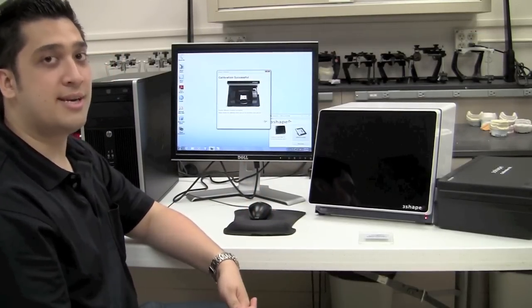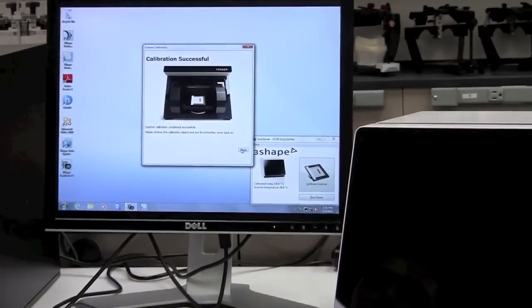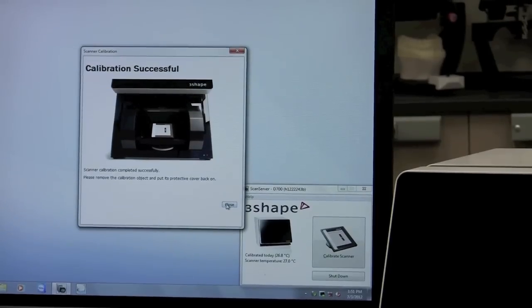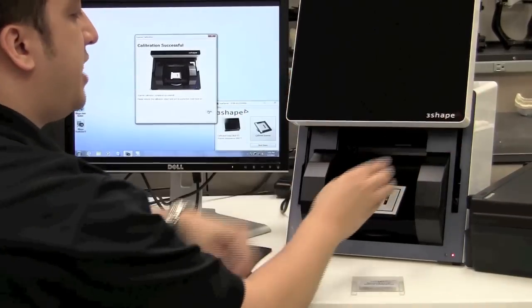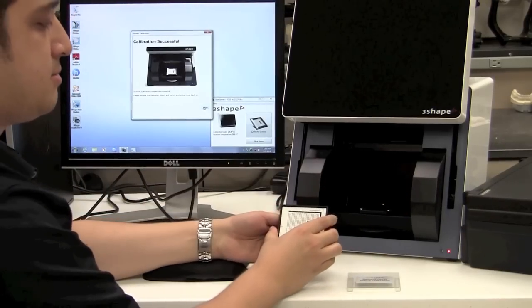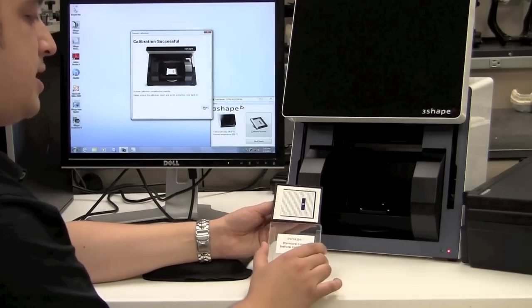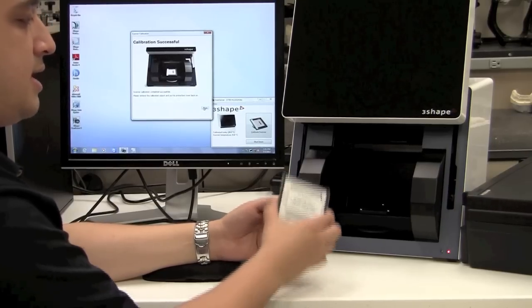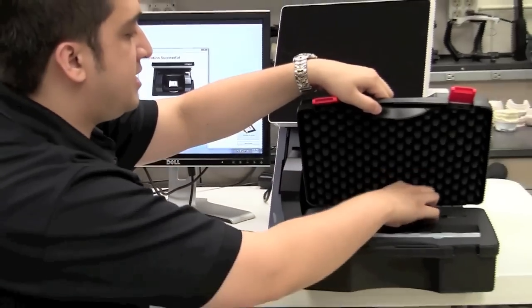After calibration is complete, you're going to get a notification window on the screen telling you that the calibration has been completed successfully. It also states to go ahead and remove the calibration object and put its protective cover back on. We'll open the door, grasp the calibration item on both sides, and pull it straight up. Then grab the plastic cover, place it over the bottom of the calibration item, and slide it straight up to protect the calibration surface. Now we can place this back into the calibration kit and set it aside for future use.